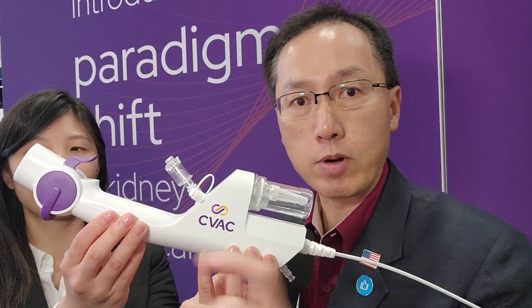You still have the lever to adjust the angulation of the ureteroscope. Typically when you're irrigating the stone in a calyx, the stone runs away from you. They've developed technology at the very tip — four micro-jets that shoot out fluid pushing toward the calyxes, bringing the stone fragments toward you, and then suck the stone fragments through the available space in the working channel with the laser still in place. Mind blown! That's why your days of doing percs on 2.5 centimeter stones, or maybe bigger, may be numbered.